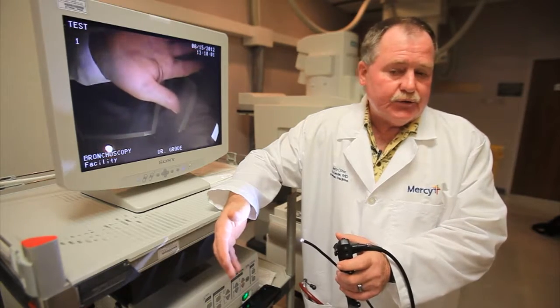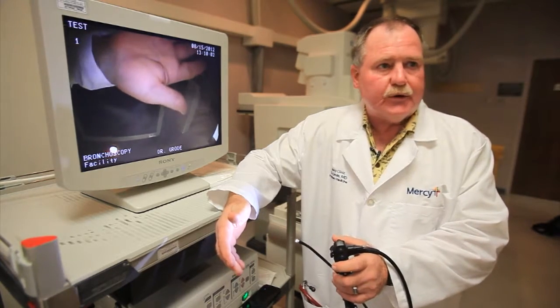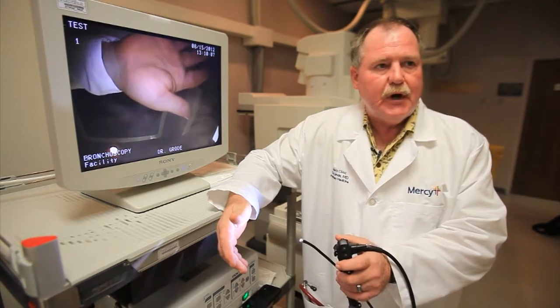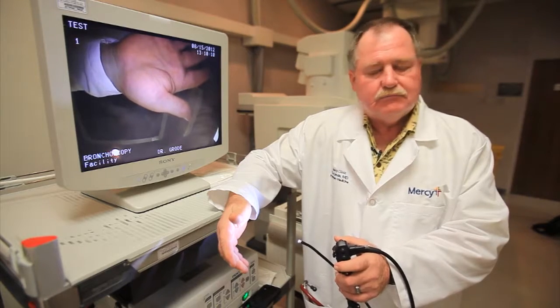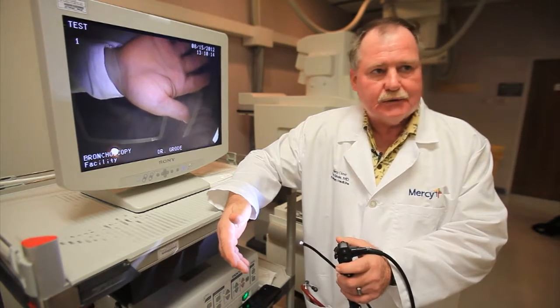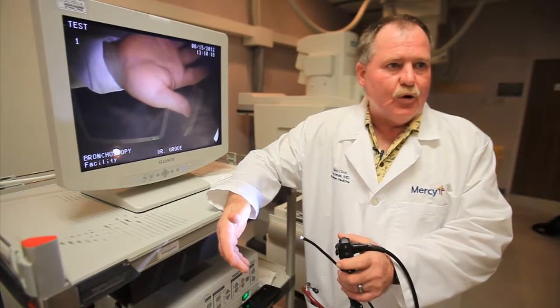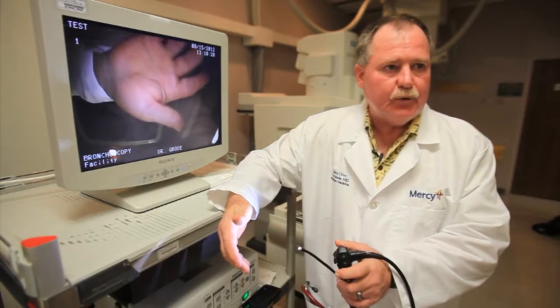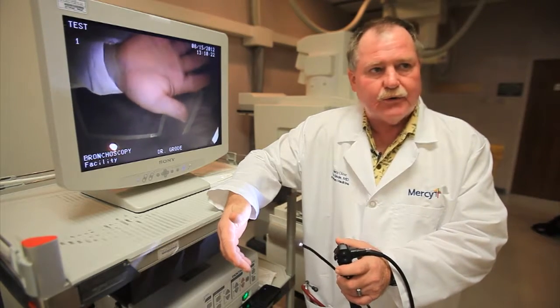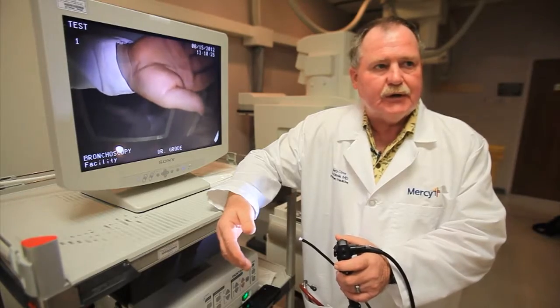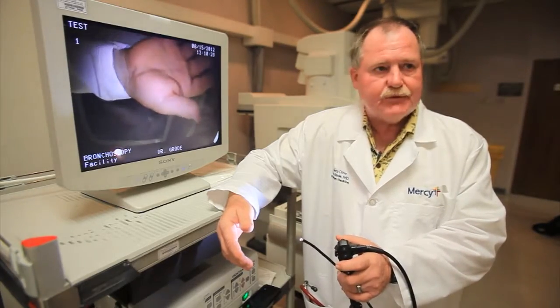The other use, the therapeutic use, is more in the critical care situation in the intensive care units when people have pneumonia or secretions or have aspirated an object like a piece of corn or a tooth. You can take this light and actually go in, and there's equipment made to snare it out or to bite it out and get the object out of the lung. So it really has several uses.